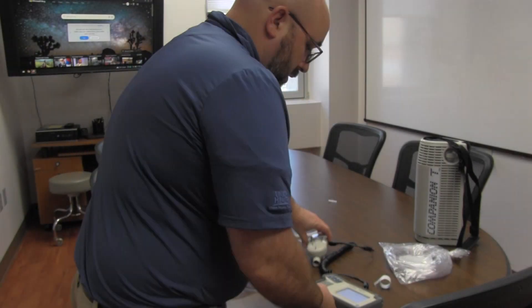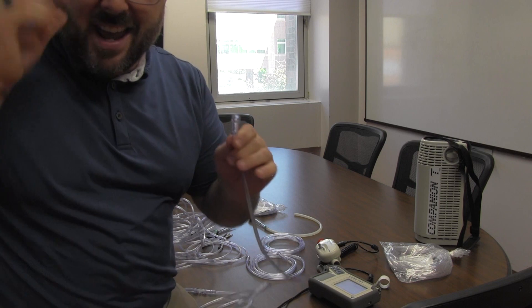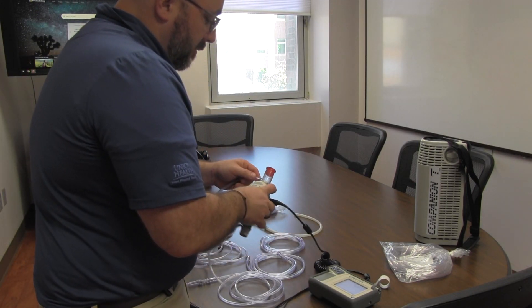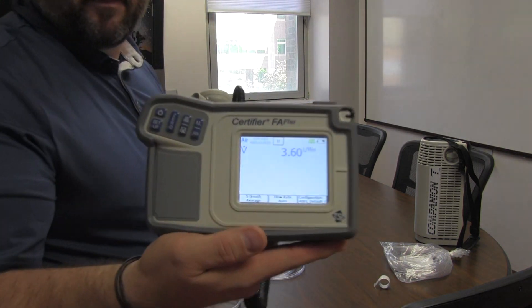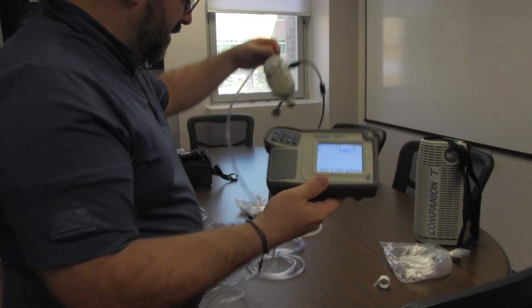We seem to be running well — 3.61 on the meter. Let's add a few more. We're at ten sections now, so ten times seven — seventy feet. We plug this in and read 3.60. That sounds familiar.